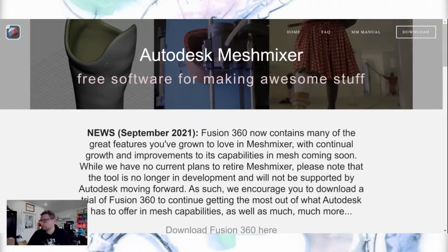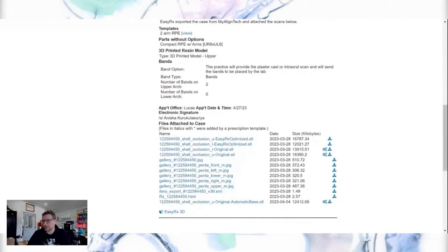MeshMixer is what I use for my ditching, and also for single-tooth repositioning — when a doctor wants to reset a tooth and then make the retainer. If it's one or two teeth I'll use it to adjust those teeth; that can be another video if you want. I have it set so clicking the file automatically opens MeshMixer as the default application for STL files.